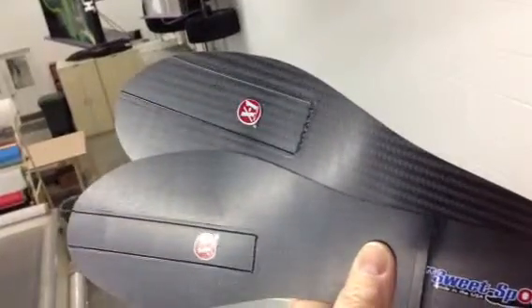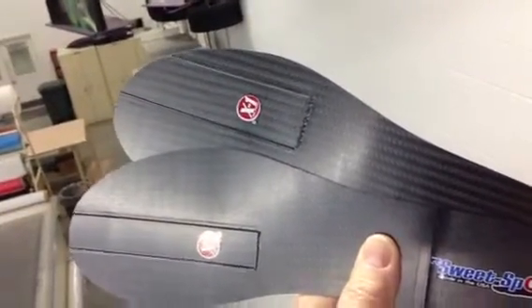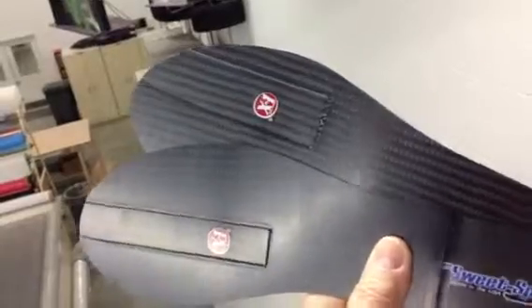The relief is for the Neuroma that's swollen and it helps to decrease the swelling. These inserts are extremely thin — four thousandths of an inch thick — super thin and flexible, so it doesn't restrict your foot, but it does give you that little extra bit of relief that you can see.